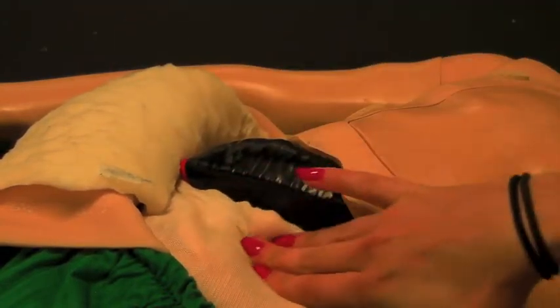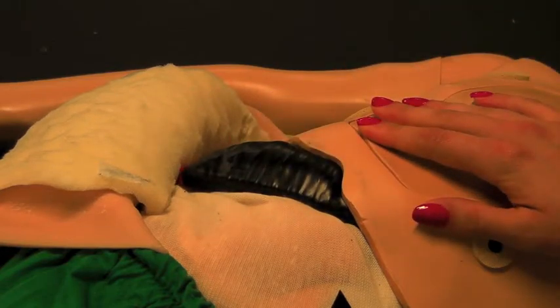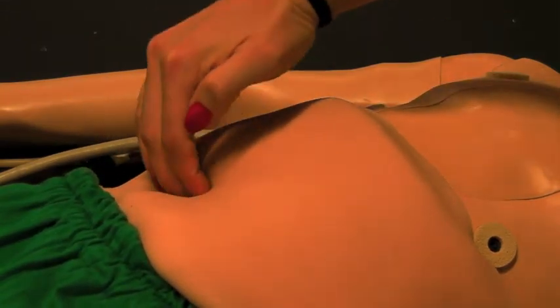You can see there's a material underneath that keeps it from pushing down all the way. Put the skin back on, and then the correct palpation technique is to start from the pelvis and sort of hook your way up so you would grab it.